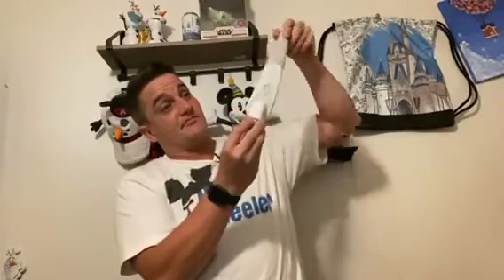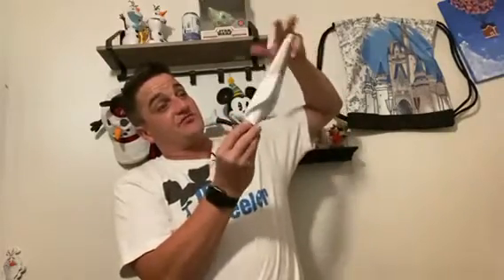To attach it, you just take the cane and give it a few quick spins and it's attached. On the back there is a speaker with a microphone. There's an assistive feature where you can ask for the nearest place and it can help you, though it's still in prototype. Right here is the on/off button — I'm going to go ahead and turn it on.